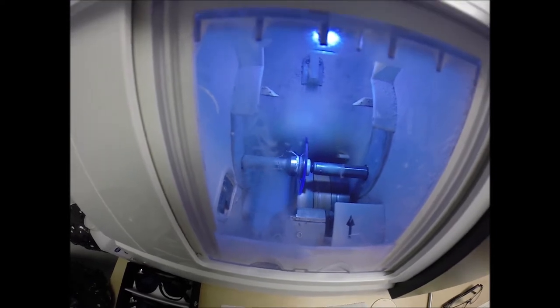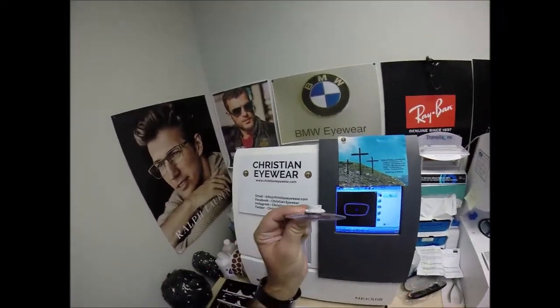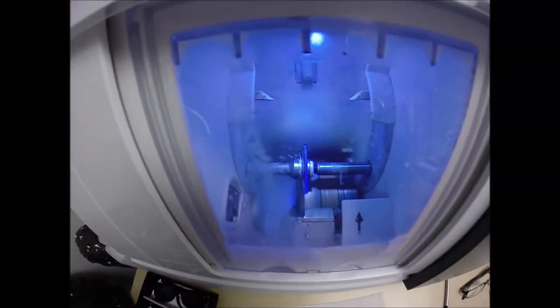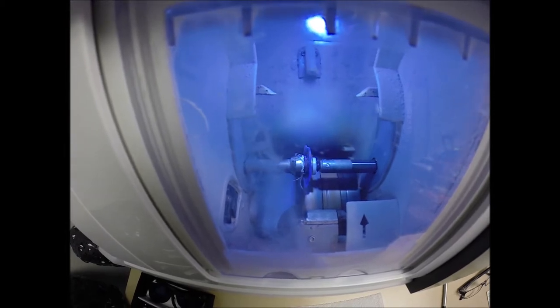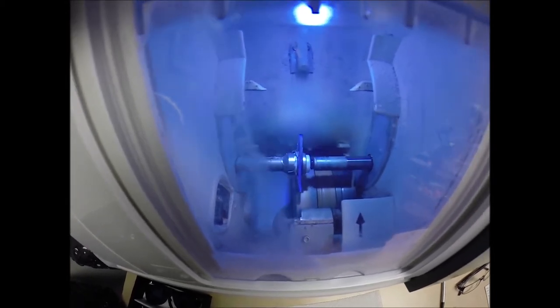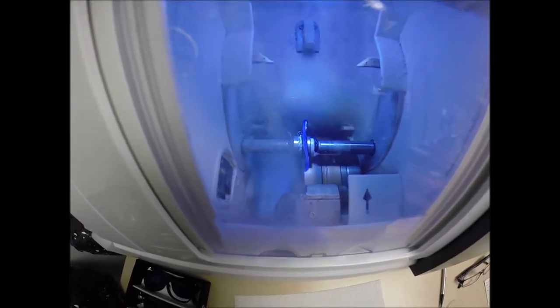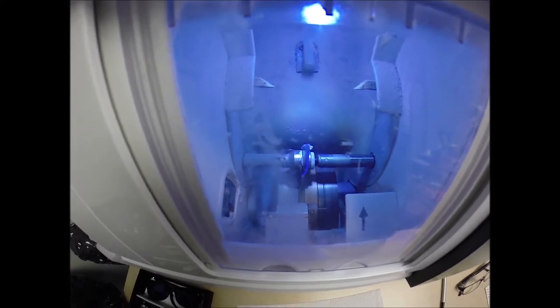Water will spray onto your lenses, Robert, just to wash away the optical debris that may form on the edge. But your lenses are made out of polycarbonate, which is 40% thinner and lighter than regular plastic. They're virtually unbreakable — these are high-impact, ballistics-grade lens material, the same lens material our soldiers wear overseas in combat zones to protect their eyes from shrapnel and flying debris. It has 100% UVA and UVB protection built into the lens. We know what the sun's harmful ultraviolet rays can do to your skin, where your eyes are eight times more sensitive than your skin.